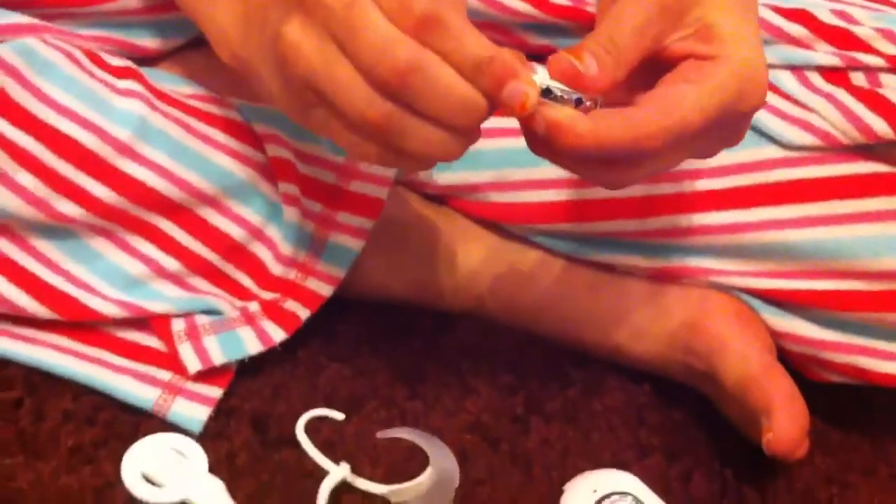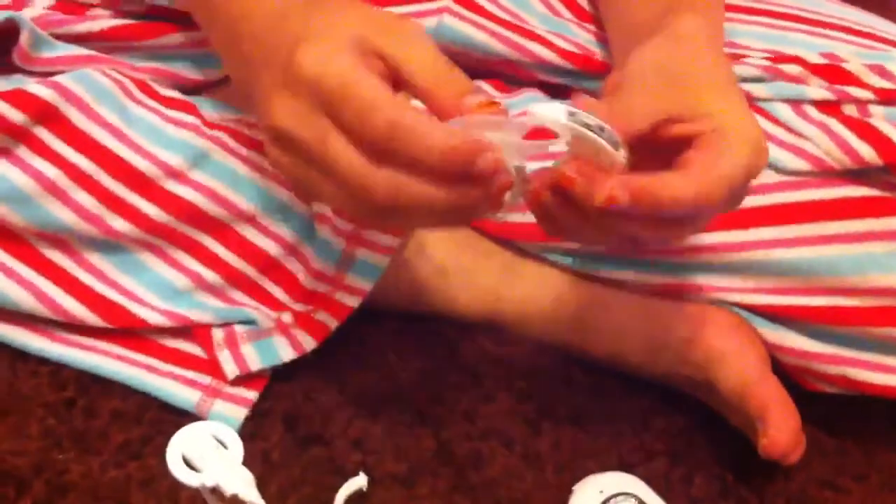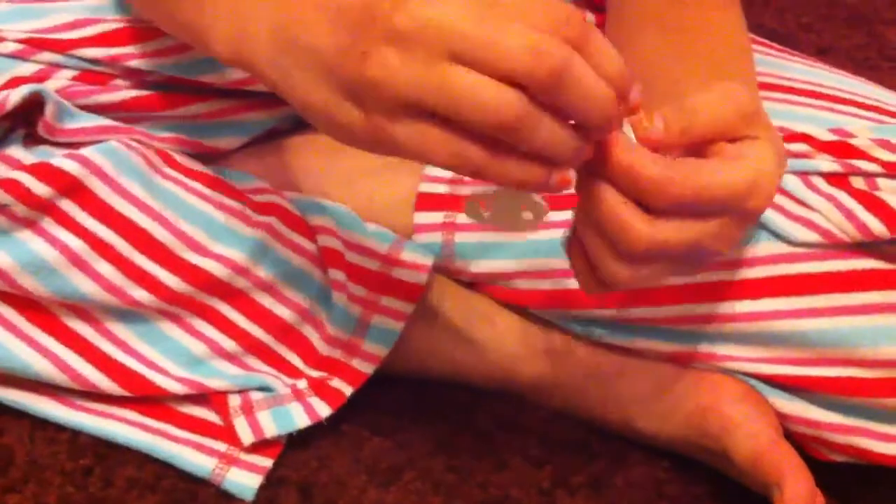This is the ear hook. This part can be difficult, and so when you play sports you can put it on — it keeps it on. You can also use a bobby pin magnet.